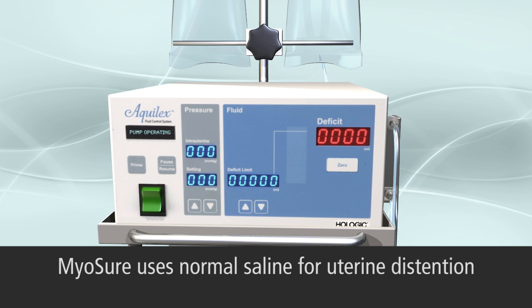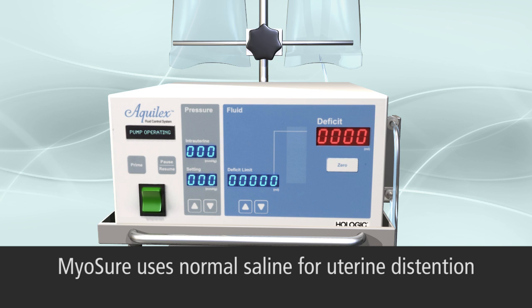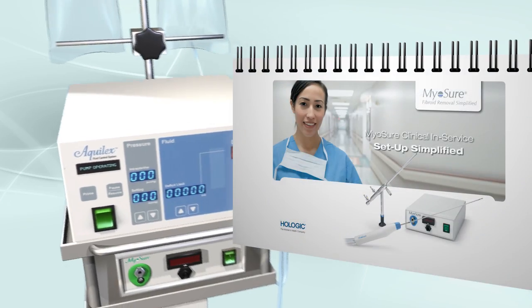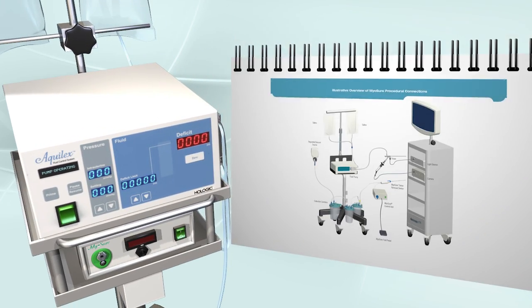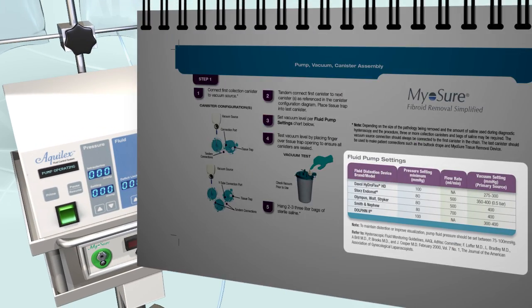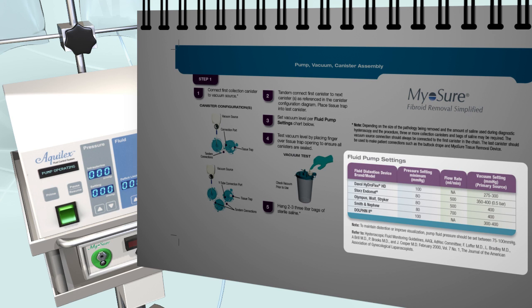Inflow of normal saline is achieved by a fluid pump that provides adjustable fluid pressure. It is important to properly set the fluid pump pressure and inflow rates based on the recommendations in the Myosure setup guide.